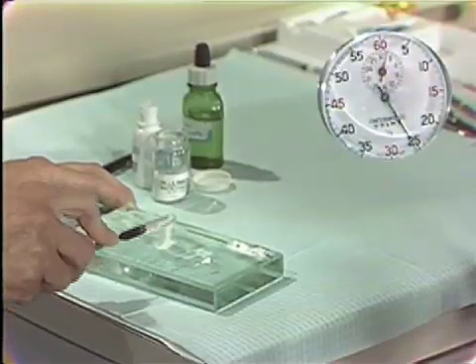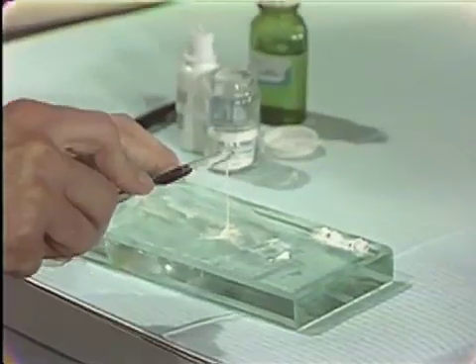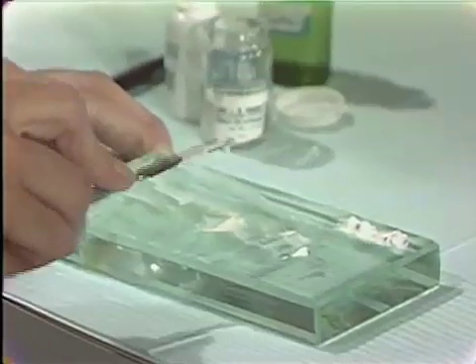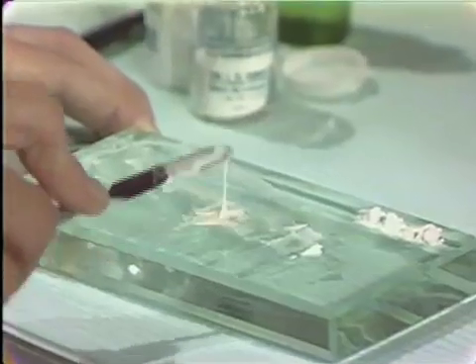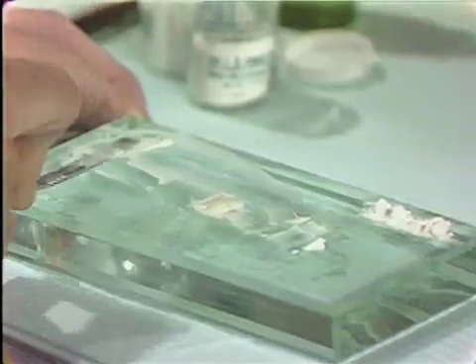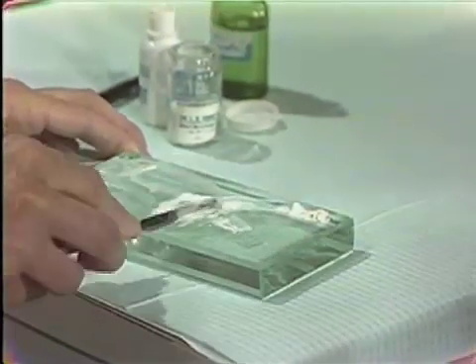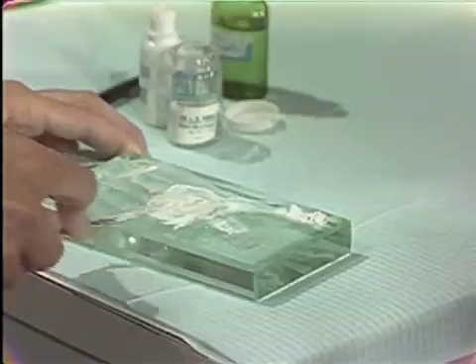We will show you again so that you get the feel of it. Notice an inch and a half to two inches — that is primary consistency, which we would use if we were seating an inlay or a crown. A bit of this primary consistency is placed in the upper left-hand corner; we will use that later.